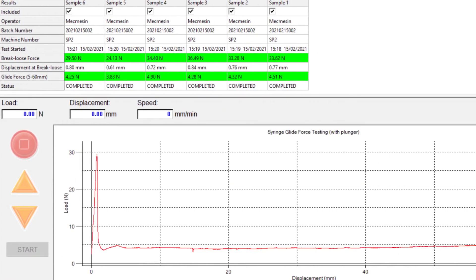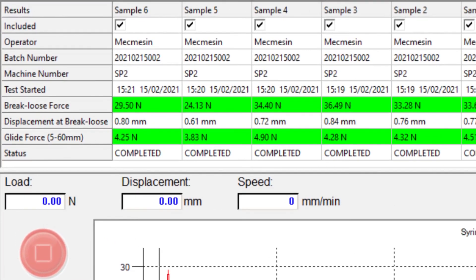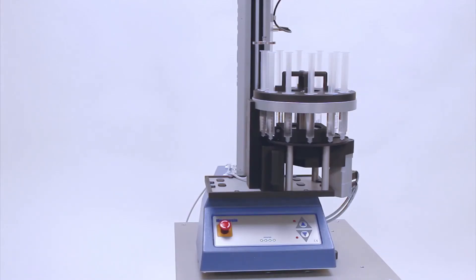And finally records those all-important break loose and glide force results with a pass-fail indicator based on the specifications laid down.